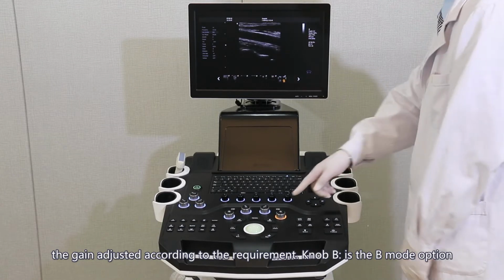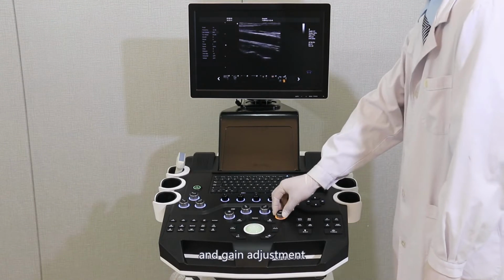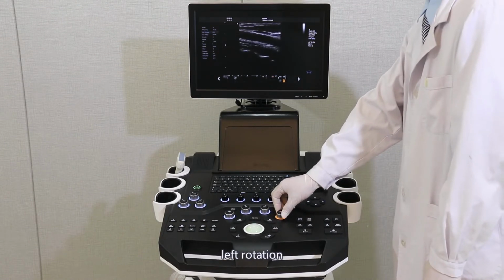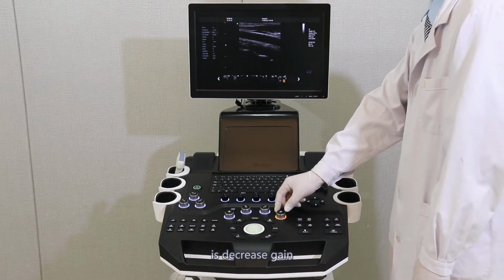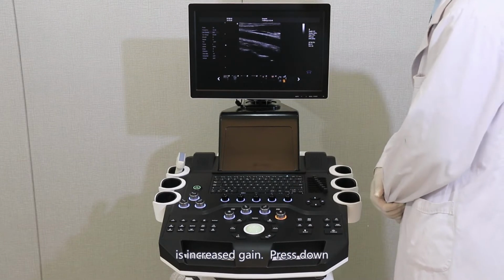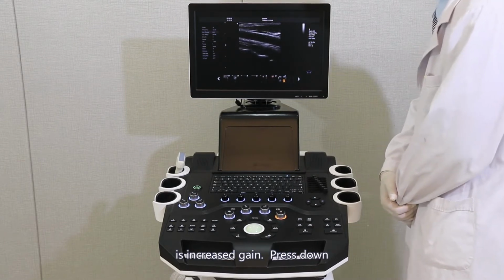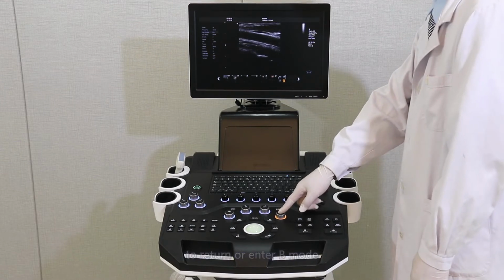Knob B. It's the B mode option and gain adjustment. Left rotation decreases gain. Right rotation increases gain. Press down to return or enter the B mode.